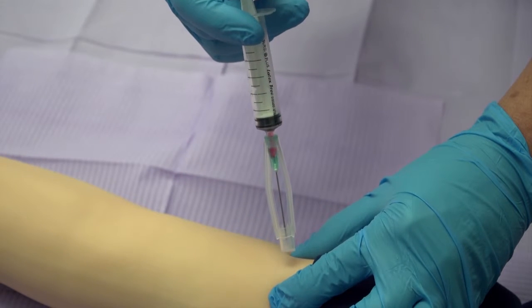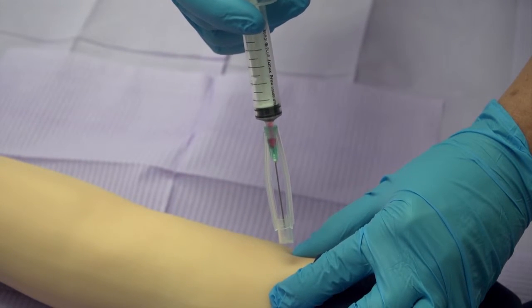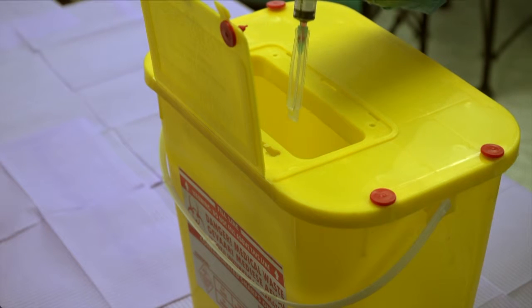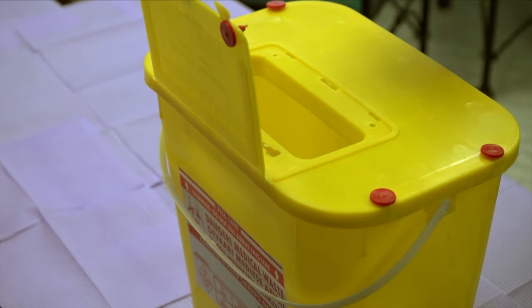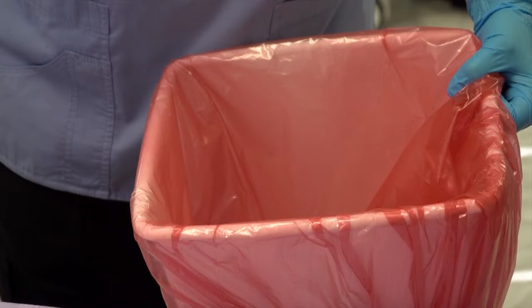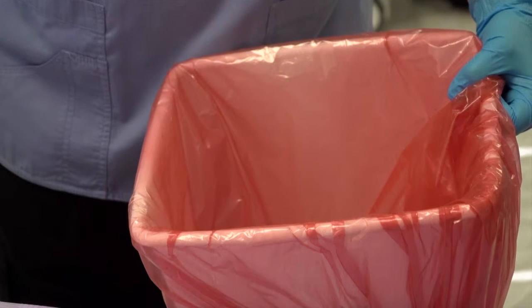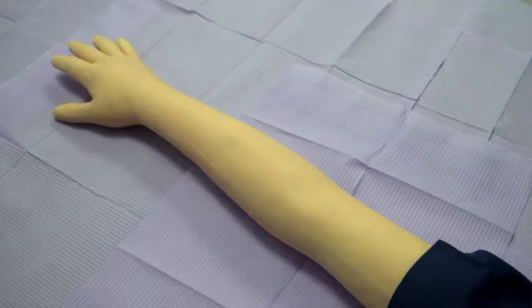Check if the needle's passive safety feature deployed correctly, and that the needle is therefore in the safe position with the end cap covering the needle tip. Discard the used needle plus syringe as a unit — in other words, the syringe with needle attached — into an approved sharps waste container. Do not let your fingers accidentally enter the sharps container. Discard the empty syringe package and needle's straw-like cover in an approved medical waste receiver.